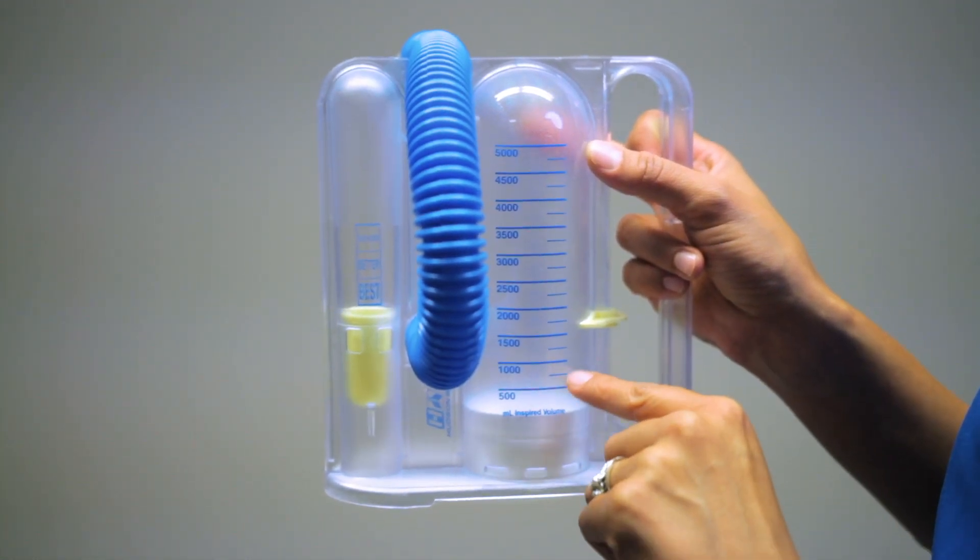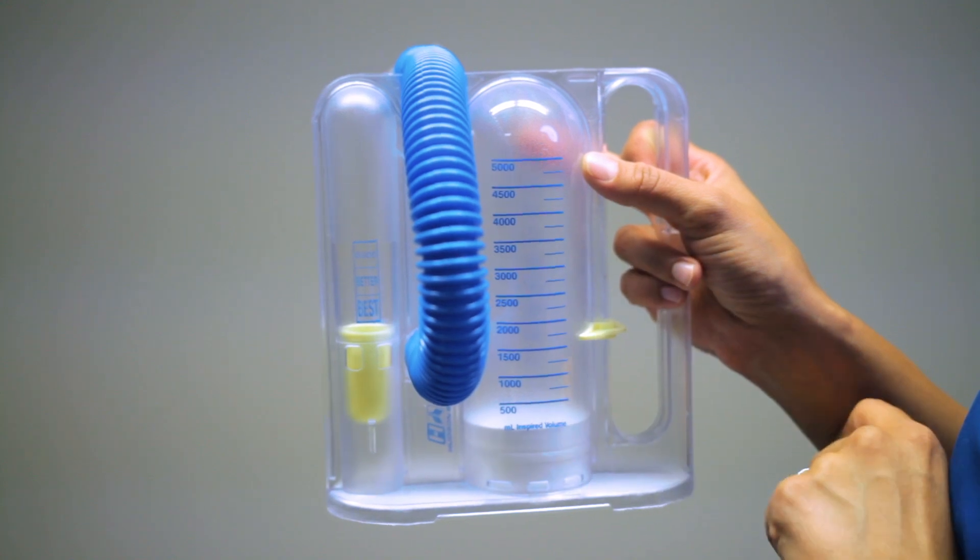This piston will move with the force of air inhaled by the patient. You will set the gauge as recommended by your provider. Your fresh post-op patient's goal at 24 hours post-surgery is usually about 1 liter to 1,500 mL. However, I will attach a link of a male versus female nomogram that is age and height based, which recommends where your goal should be.